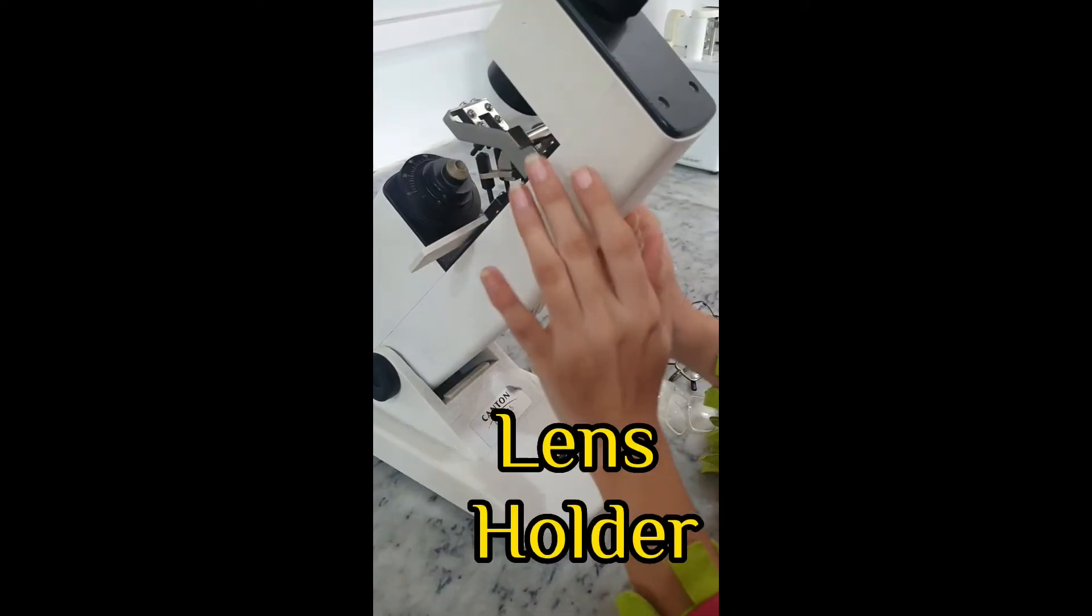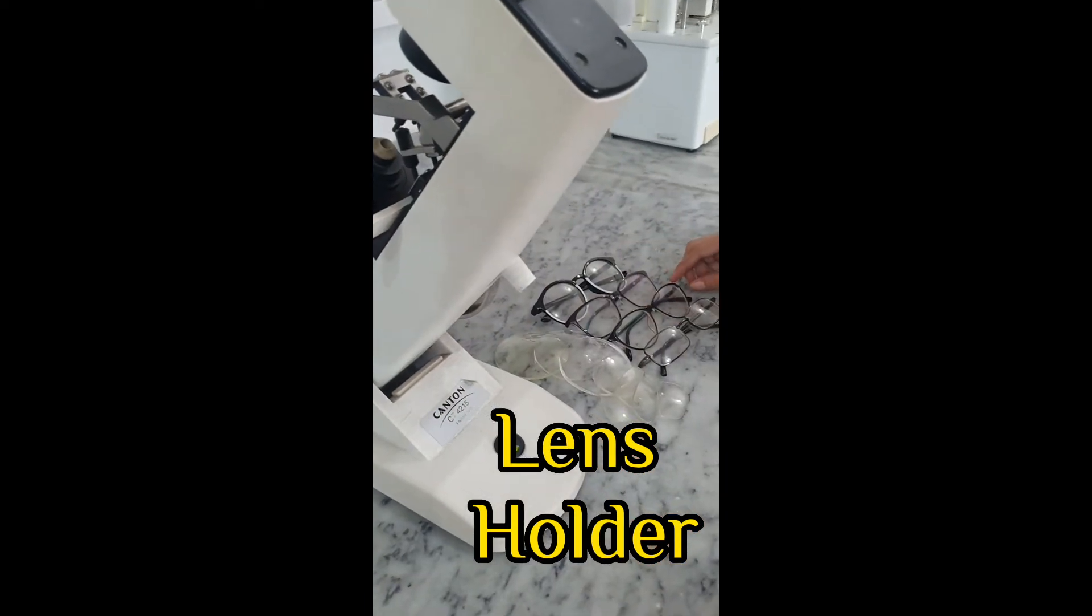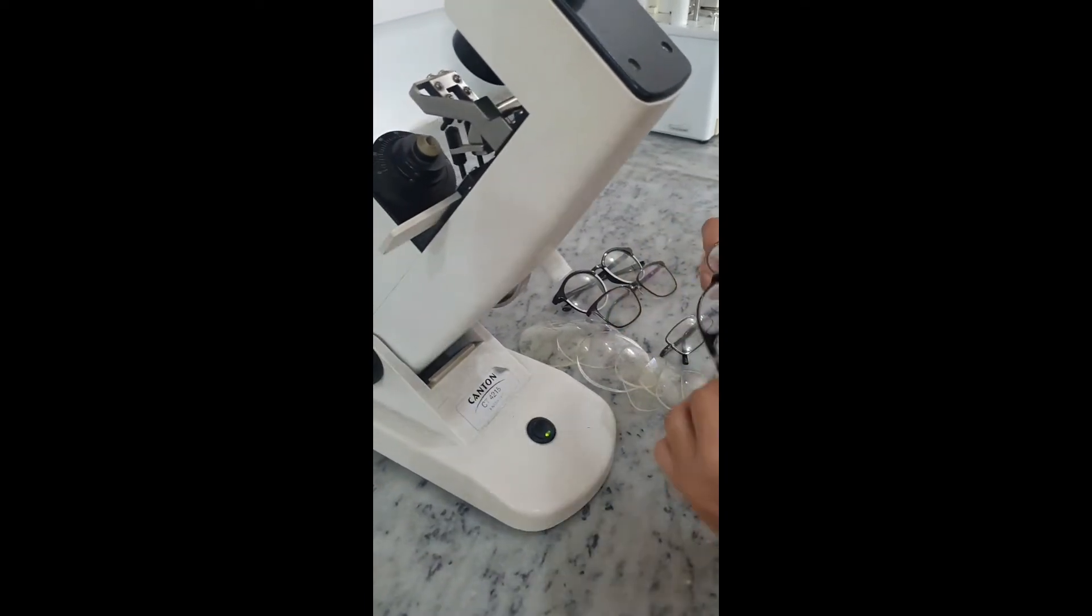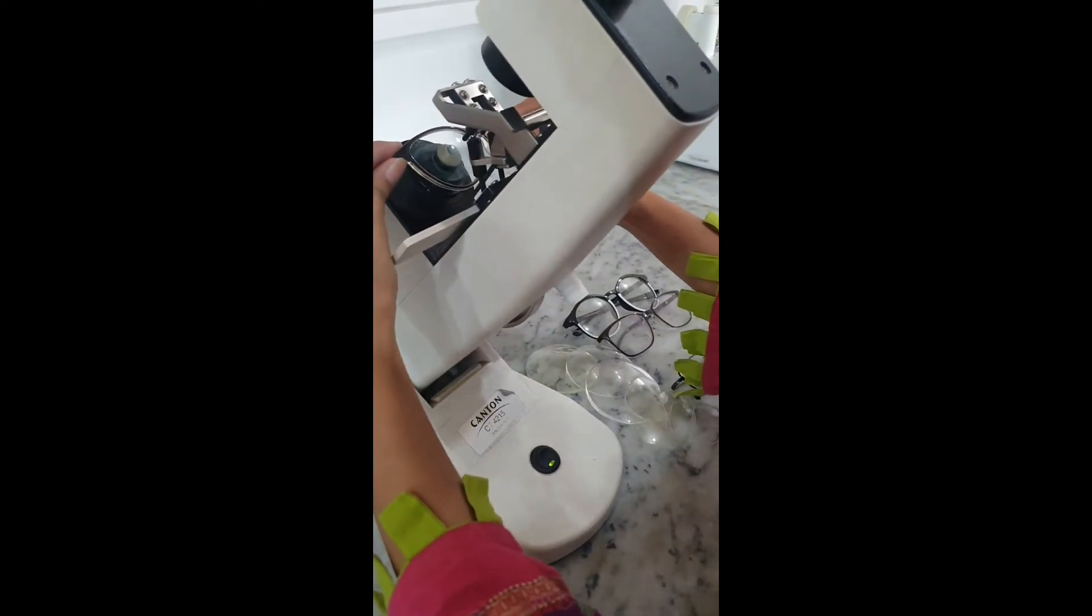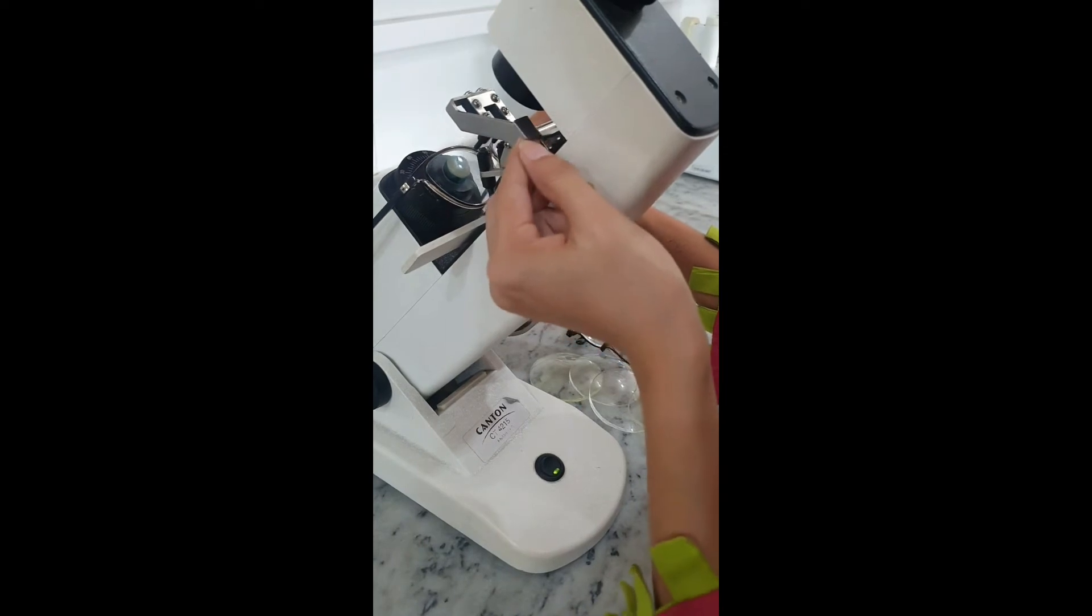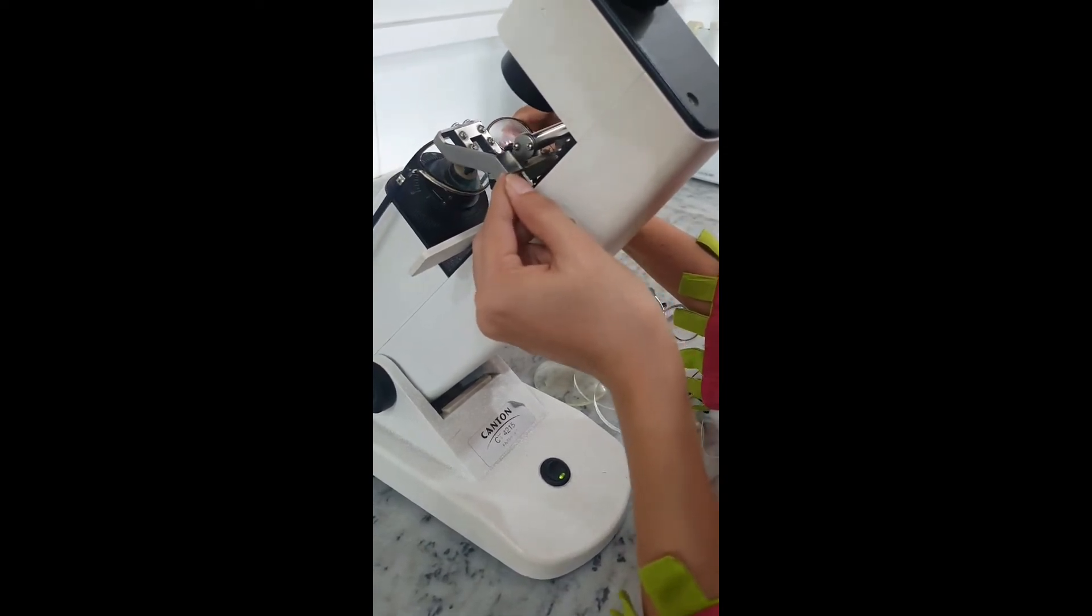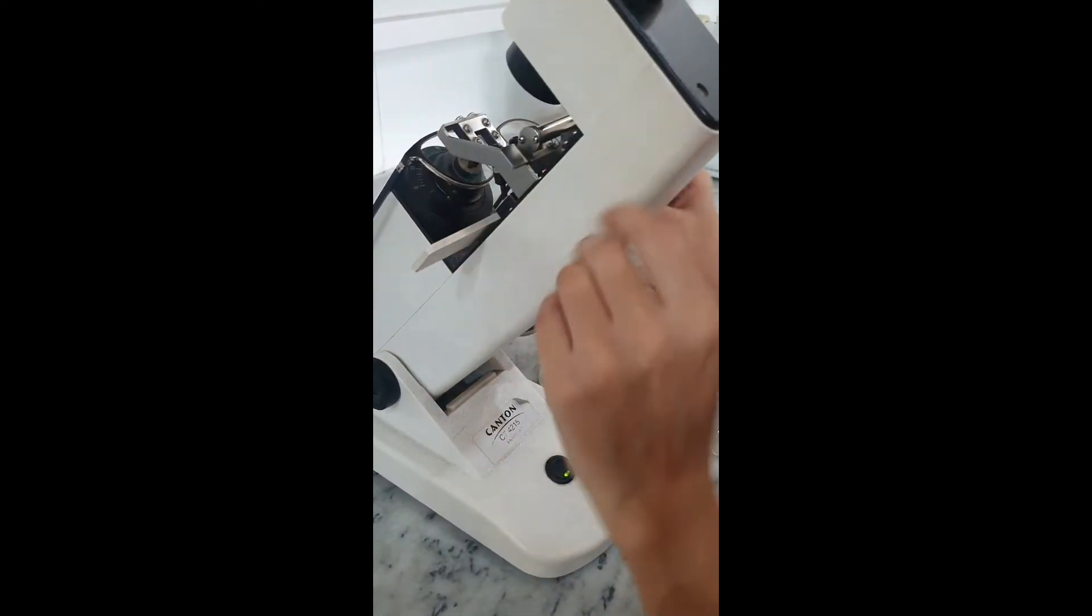Lens-holder to support the lens that is being measured. Any lens more than plus or minus 3 diopters in power, you must measure through the back. So, you normally put glasses in lensometer like this. It could be more accurate for higher lenses if you measure from the back.